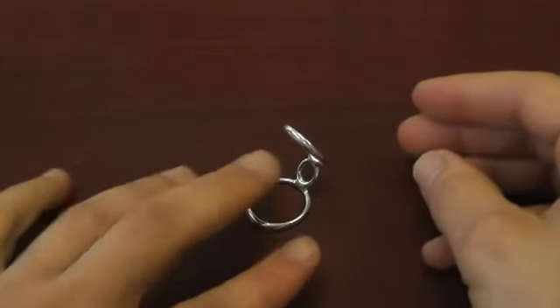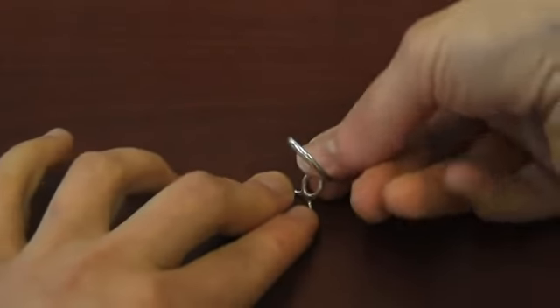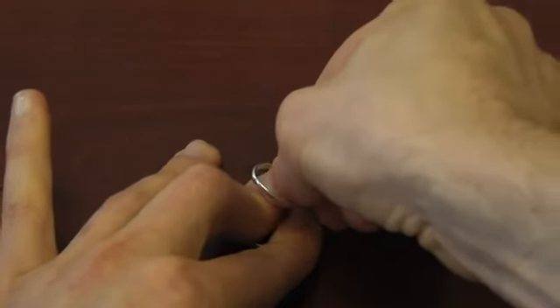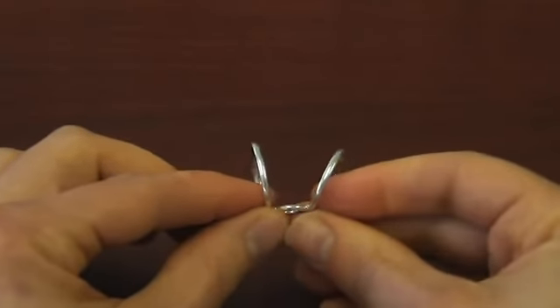If you use the 15 degree slot to measure, then you will need to adjust the ring when you receive it by decreasing the angle or bending the ring in.